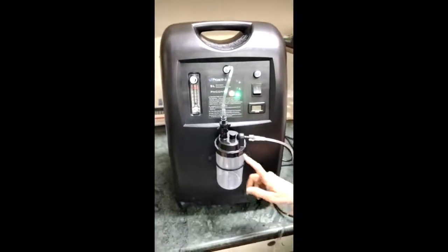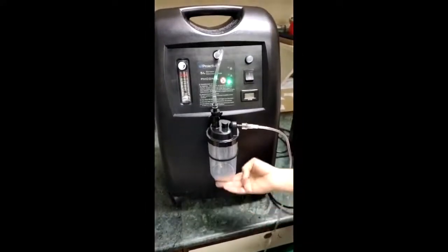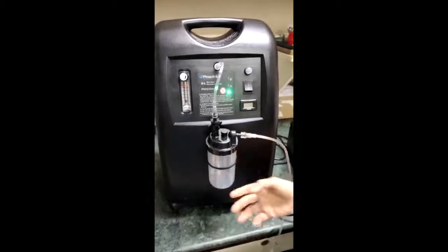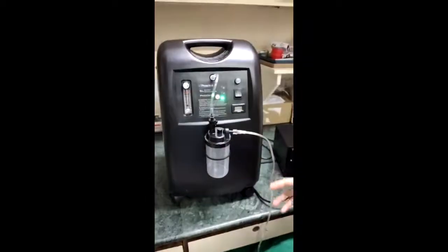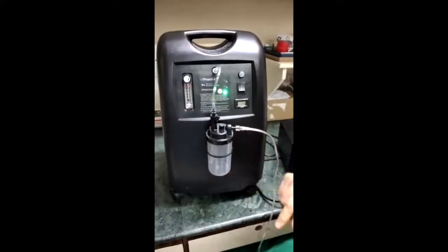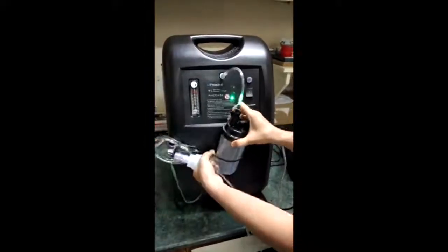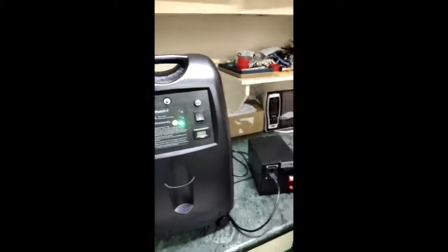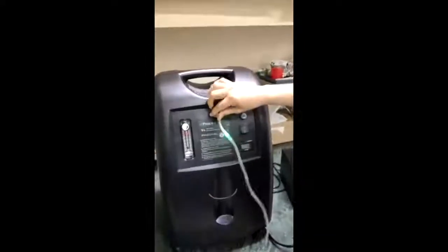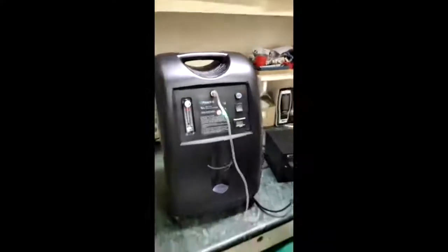In addition, this water can act as a source of infection — either from contaminated water or an unclean bottle. With the rising incidence of mucormycosis, many clinicians feel this water may also be a culprit for contamination. So in my opinion, we should not be using the oxygen humidifier. You can remove this bottle entirely and attach the tubing directly to the oxygen output port.